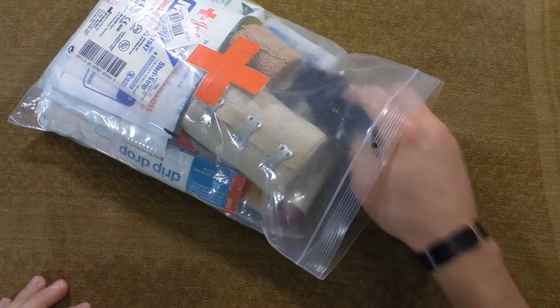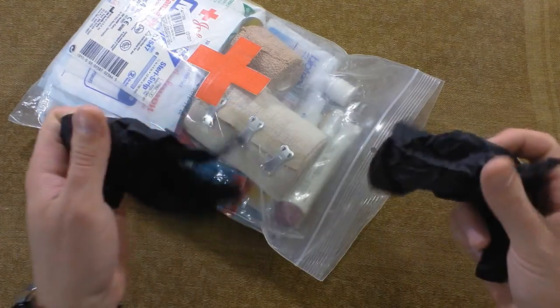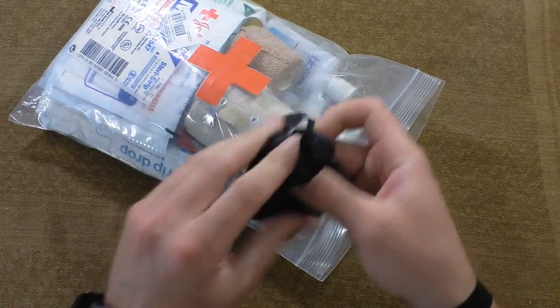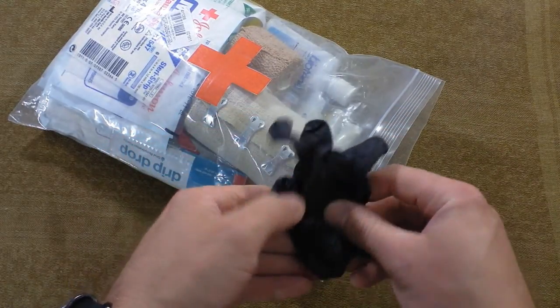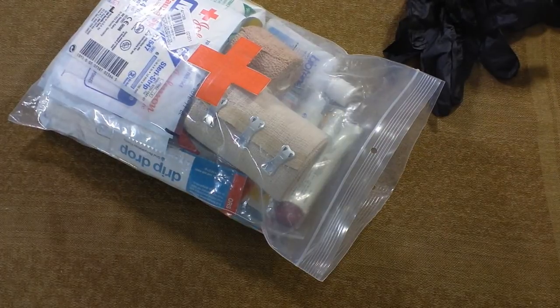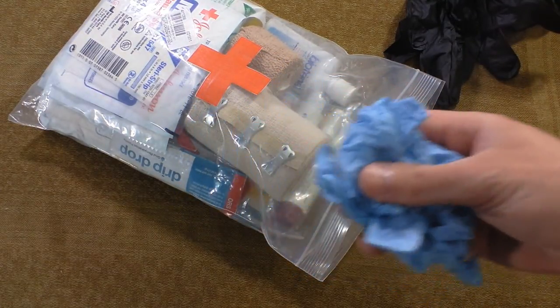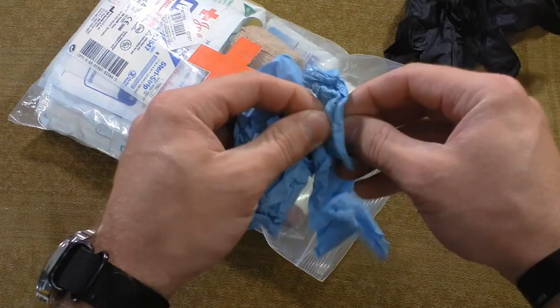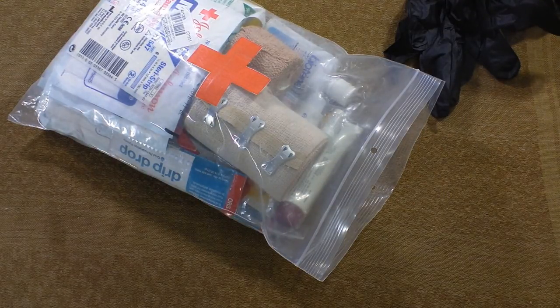First you're going to want to have access to some gloves. Have them near the top or at the top basically. A great thing you can do is put these in a small Ziploc bag to keep them clean - like I'm contaminating them now just by using them. What you want to do is put them in a bag and put them back in. Here are the old gloves I had - they were in there probably for about a year, year and a half. You can hear it - they're kind of sticking together. So I went ahead and replaced them. That's what you want to do: go through your kit about once a year.